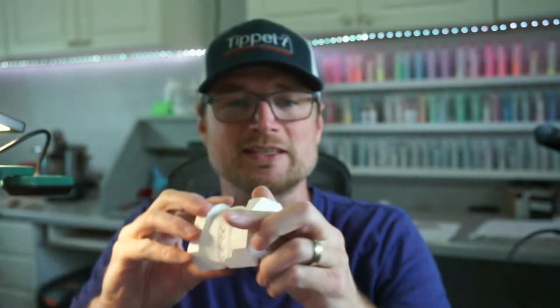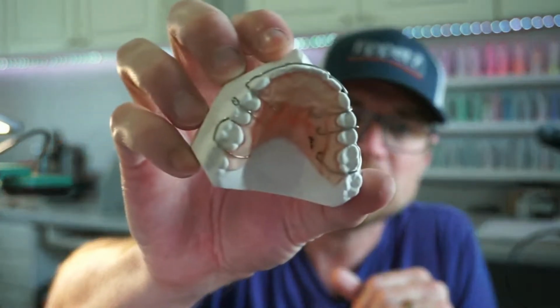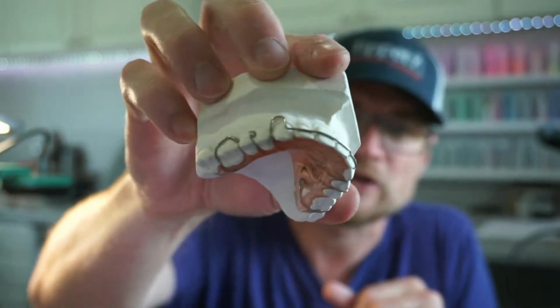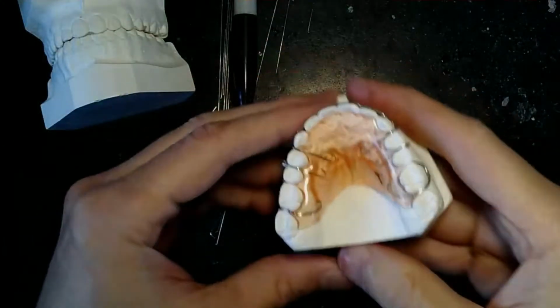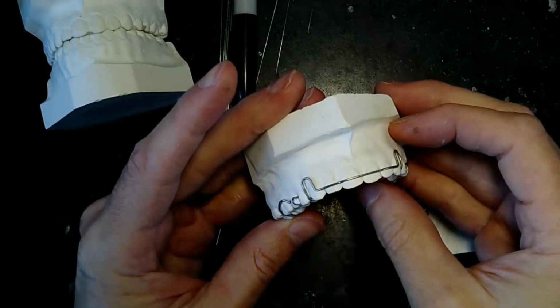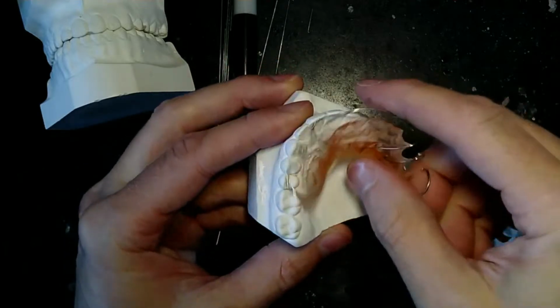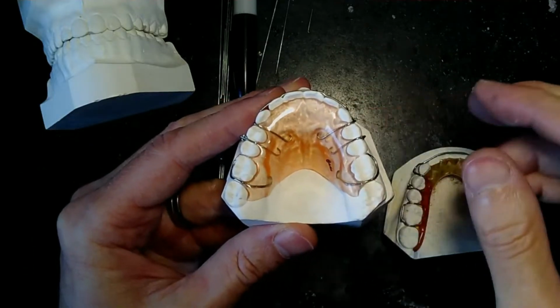So you have to make a set of study models and bring them to the exam, and they're going to grade them. And then you have to bring other models. Now these are all in different colors, but the one we're doing today is the upper Hawley. It has an arrow clasp on one side, a ball clasp, two C clasps, and a labial bow 3-3. It doesn't mention where the acrylic needs to be, but we'll look at the instructions real quick.